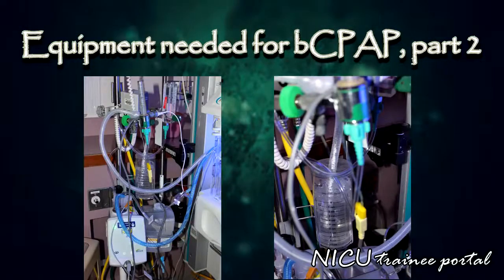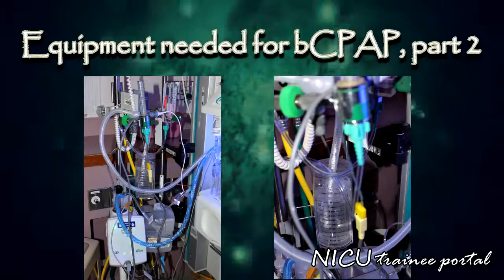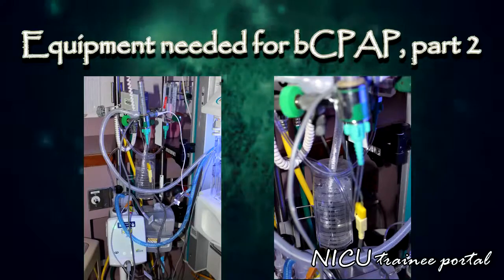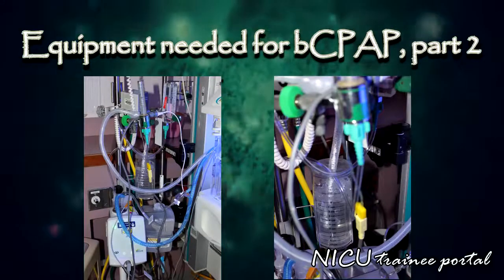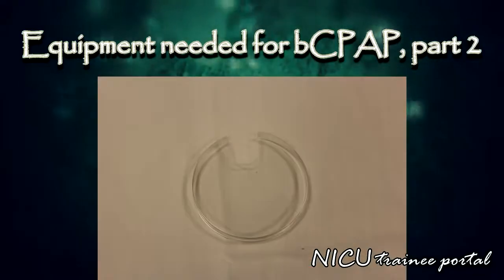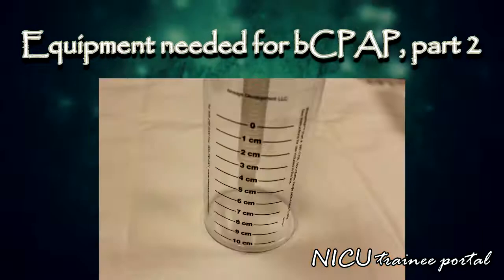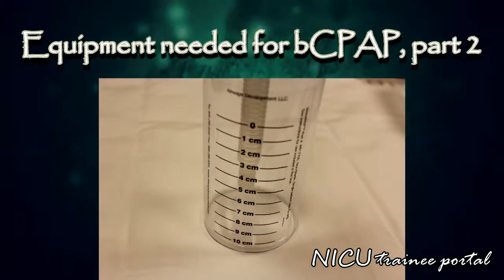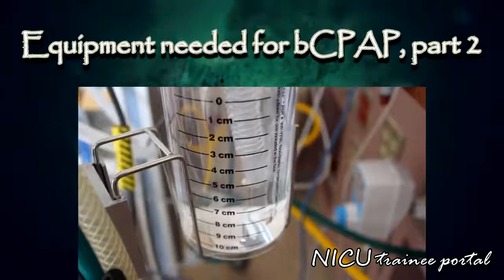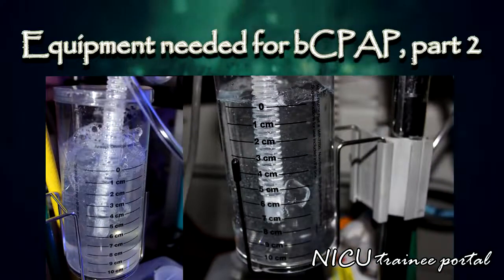The following section outlines the equipment currently being used at one of our NICUs to set up the remainder of the bubble CPAP apparatus. You will need the following pieces of equipment: CPAP chamber, CPAP chamber cover, corrugated tubing hose. One end is attached to the expiratory limb of the breathing circuit with its terminal end immersed under water seal in the CPAP chamber to create positive pressure. As you can see, lowering the level of the tubing into the CPAP chamber will result in a higher amount of positive pressure delivered.